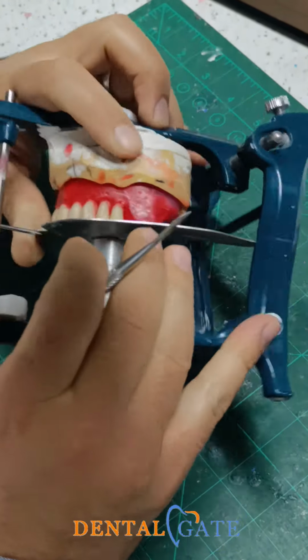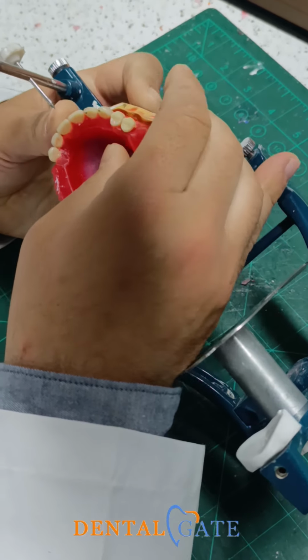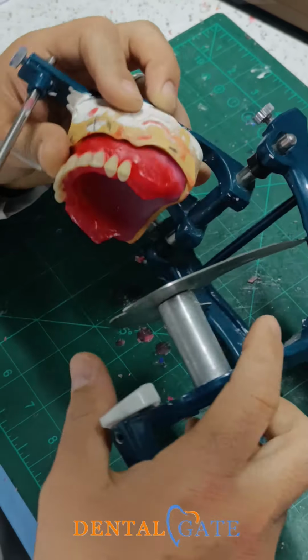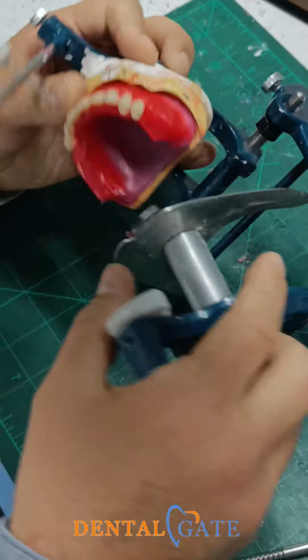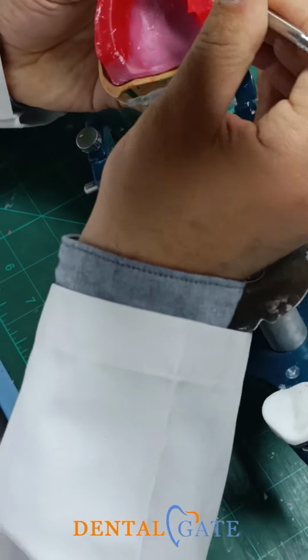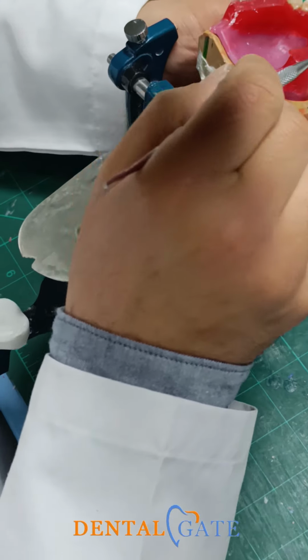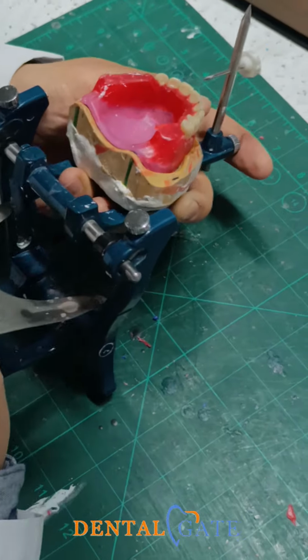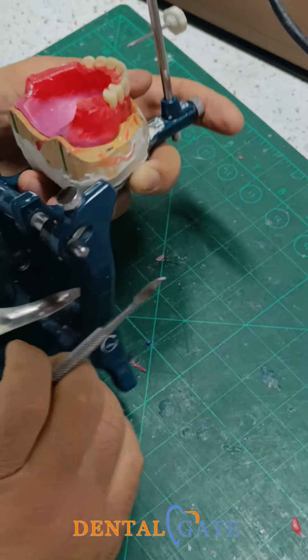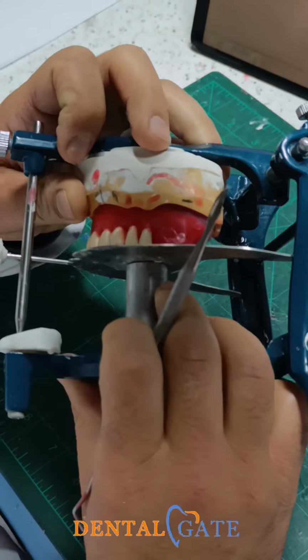So you can now make evaluation of the contact area, and of the proper position. The sulcus should be within one line. Be sure the teeth are upon the crest of the ridge. Okay. So this is what I need now.